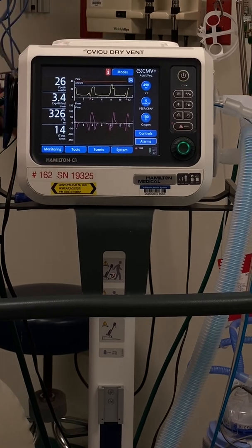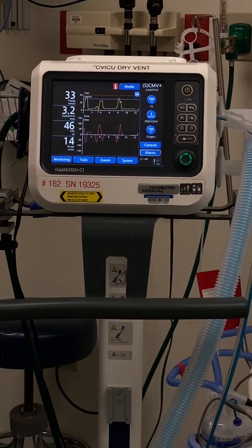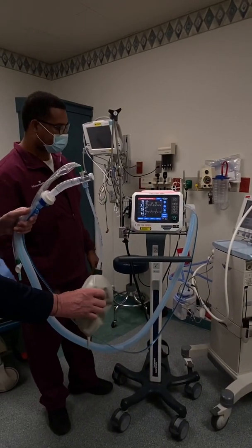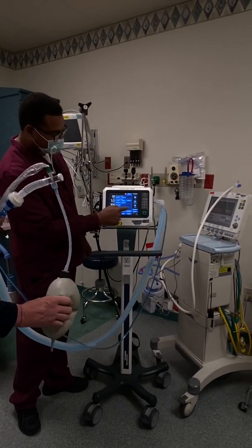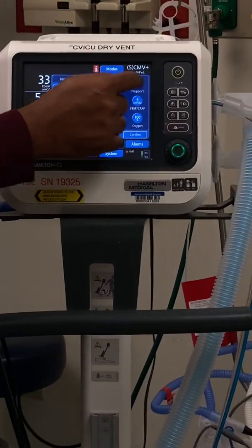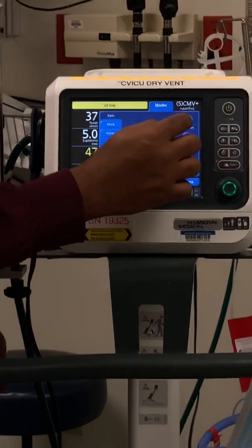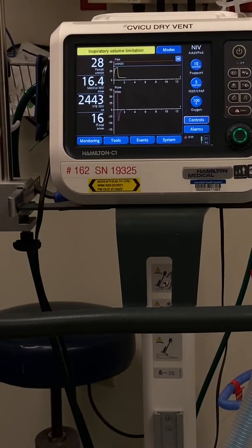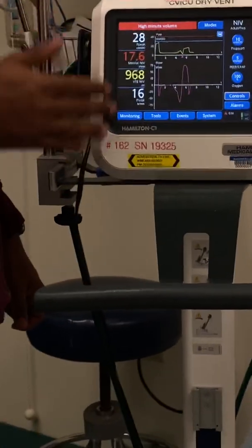That's how you set up a Hamilton C1, ready to go, with pre-selected settings already there for you. If you're trying to change mode to non-invasive, confirm and change the numbers you want for BiPAP — for example, 10 over 5, 100% — then confirm. Now we're in BiPAP mode. This is what is pre-selected for the patient.